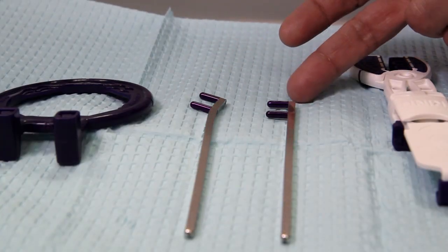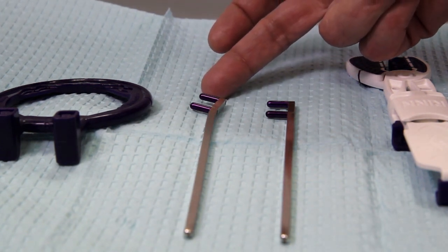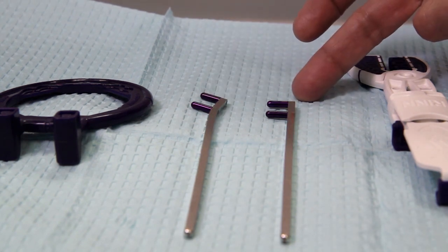The kit has two bars. Notice one has a 15-degree angle and one is very straight. The 15-degree angle is available for the shots that you need to get the apex of the tooth, which does not show up with the traditional straight bar.